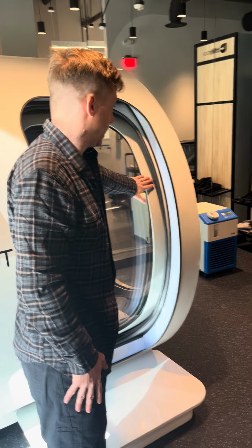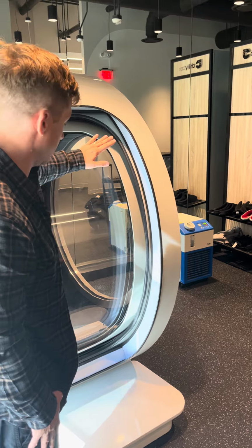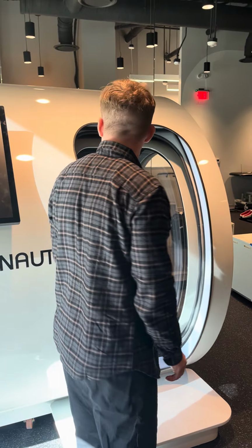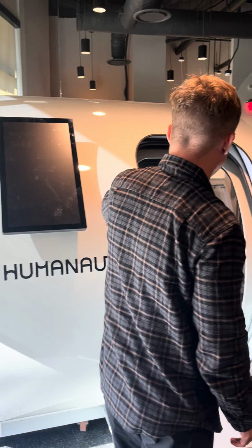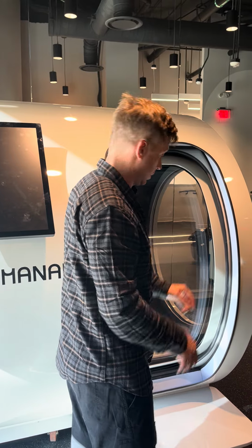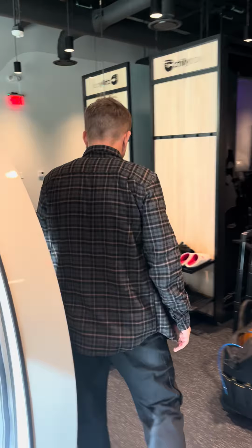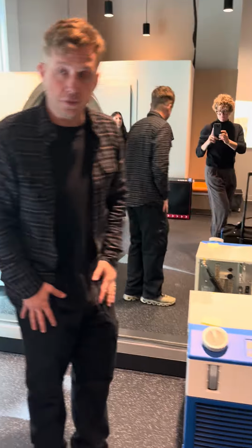Try to keep this closed at night. Just keep bugs or dust out of there. It's always a good idea. There is sunlight hitting the acrylic, so it's a good cover when the chamber's not in use.